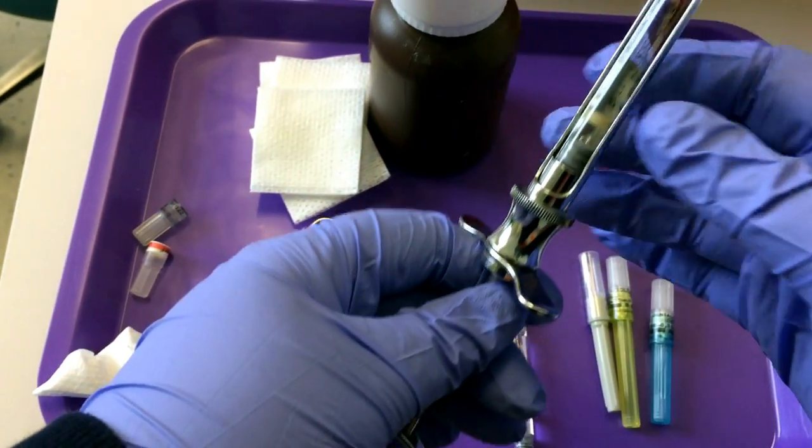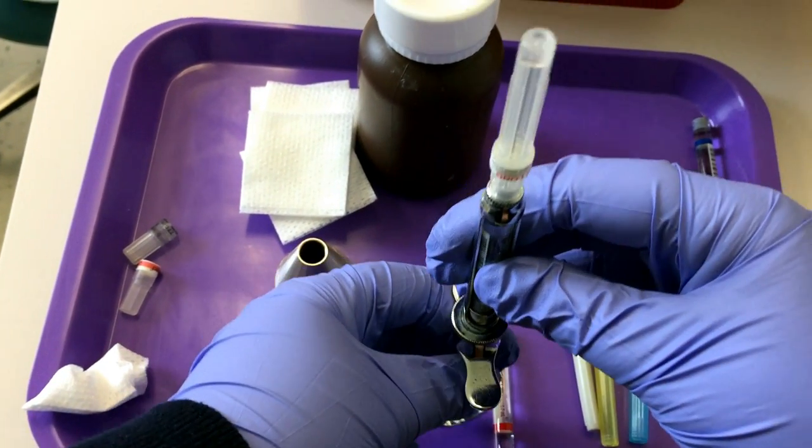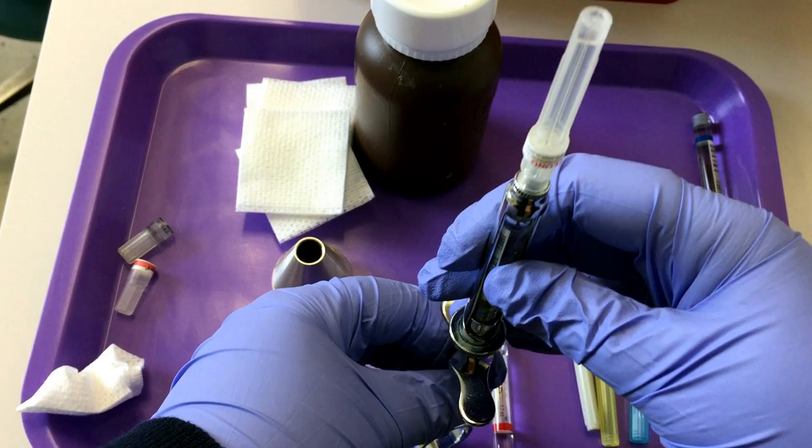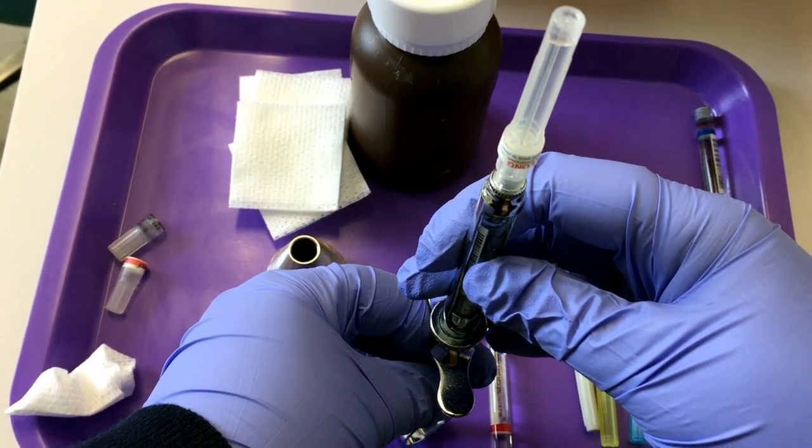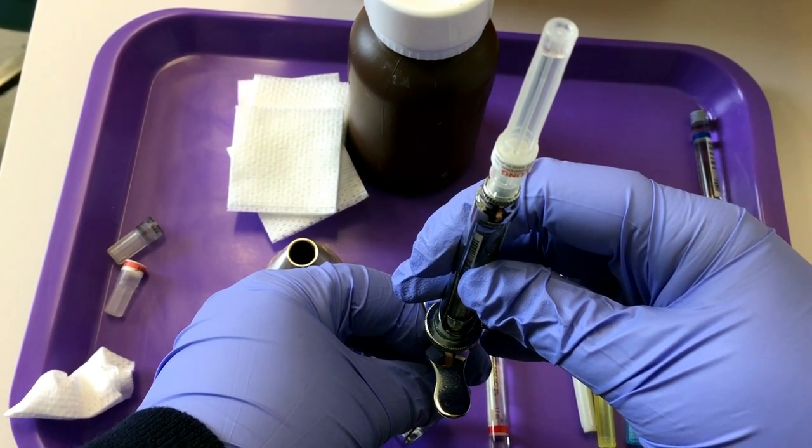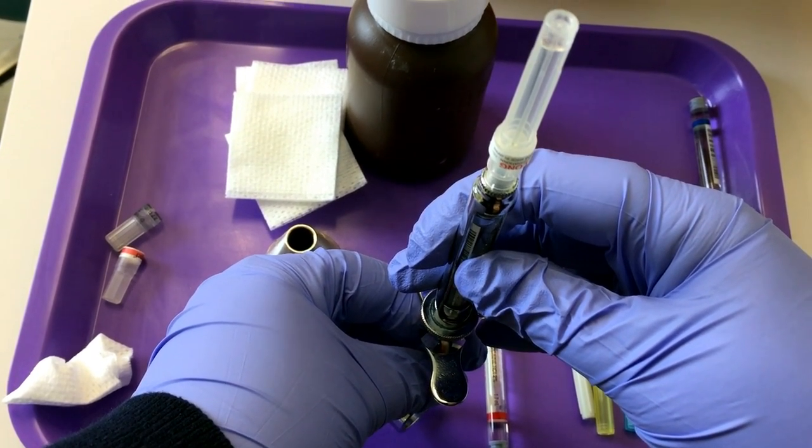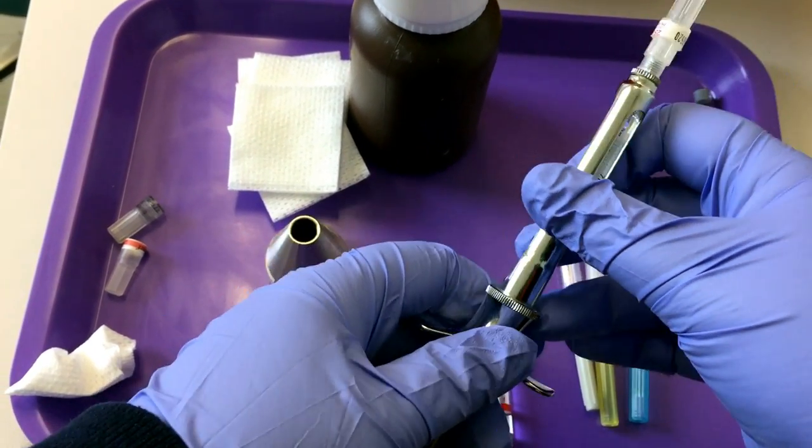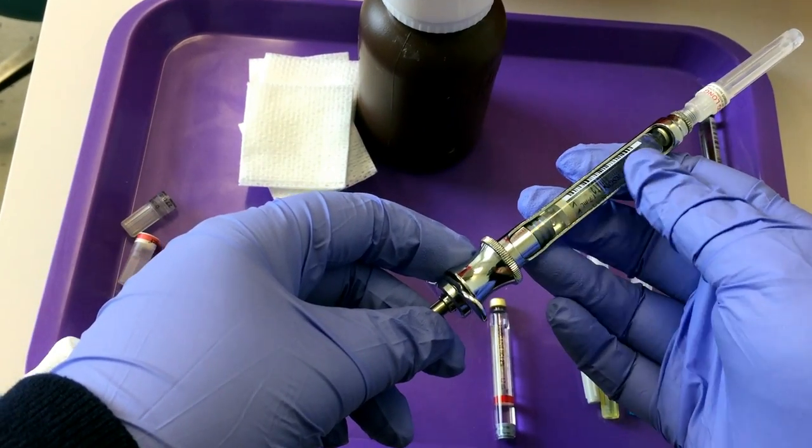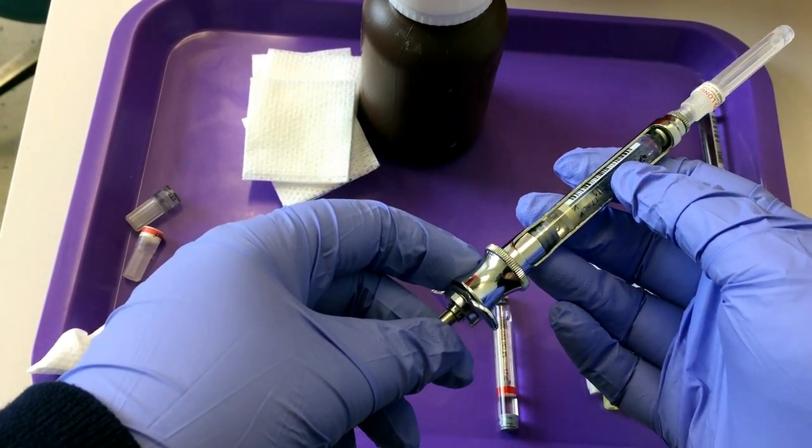Engage your harpoon again, give a little test, dispense two droplets of anesthetic. And this is ready to be used or to give a second dose to a patient.